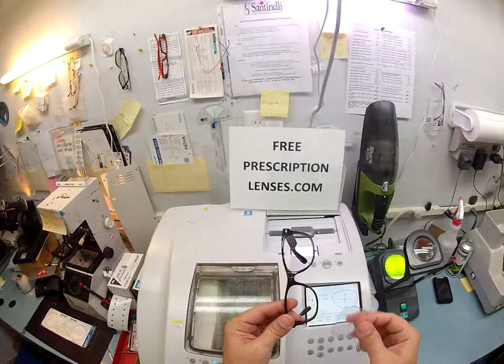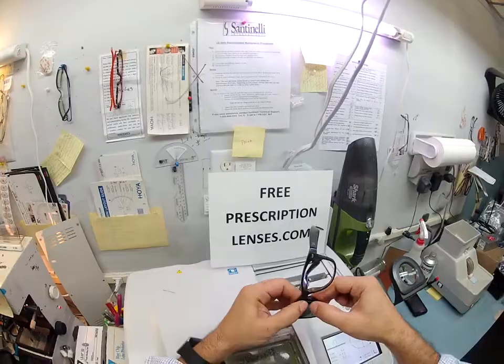To put it back in, I turn the frame upright, tuck it in at the outside corner, and using my thumbs press down. You see how easy that goes in. Now let's try this with the original glass lenses — can you hear that glass? Same thing: you tuck it in at the outside corner first, and then using your thumbs.